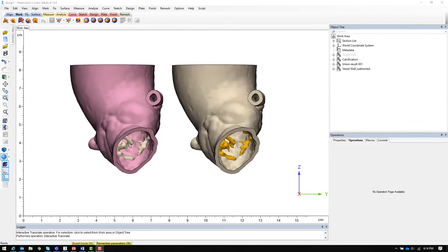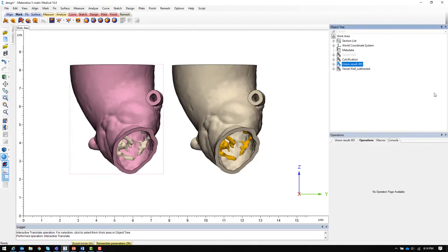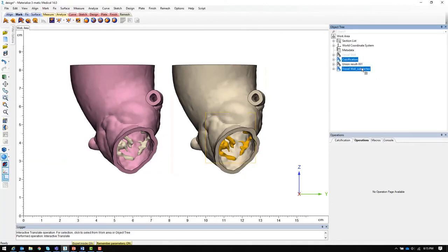In summary we have shown two model preparation methods. The first, the multicolor method, allows us to create a single model file when printing opaque multicolor materials. The second method, where we create multiple STL files, allows us to print in multiple materials, including transparent and flexible materials.